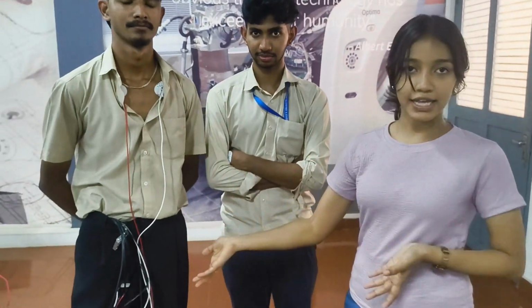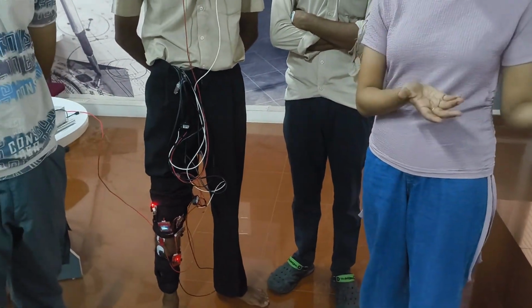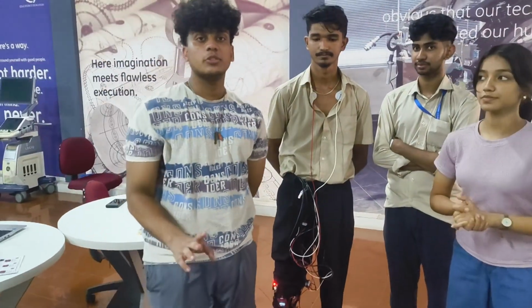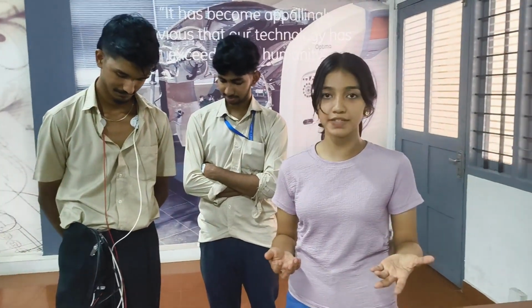So here we have built a wearable device, a wearable leg device. This is the device we have built, and we have named it AYRA. It is a single unit wearable device, and we use edge processing, so nothing is sent to the cloud, and the personal data of the user is stored locally and only accessible to the user. To start off with what autonomic dysreflexia is, it's a disorder that often occurs at about the T6, T7 level of our vertebrae system.